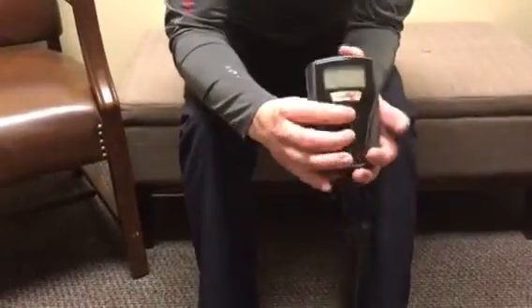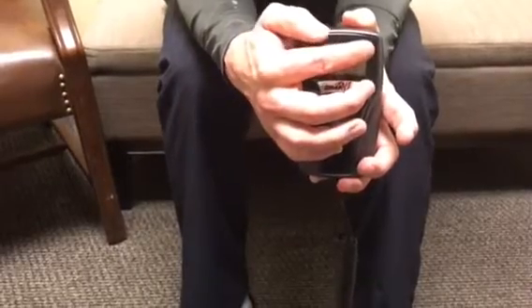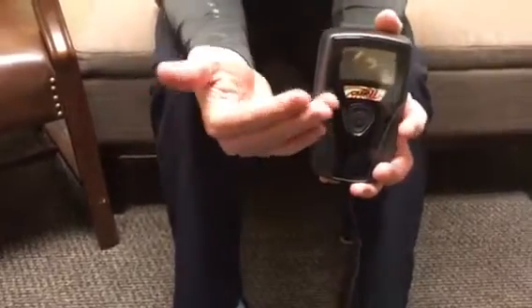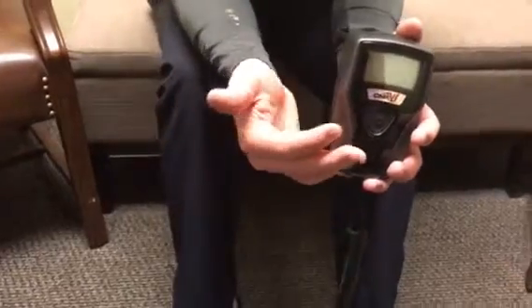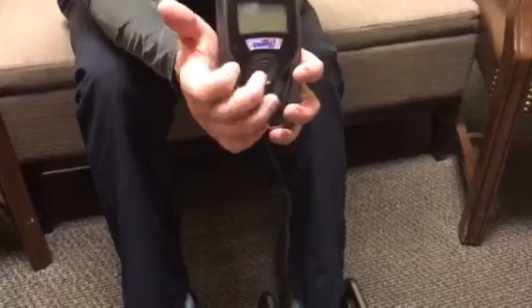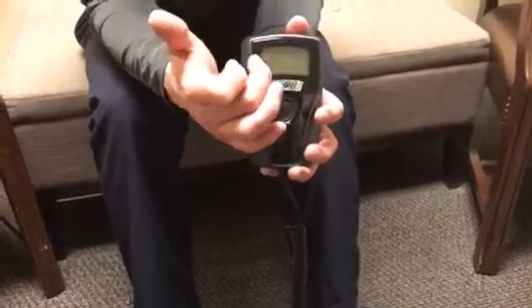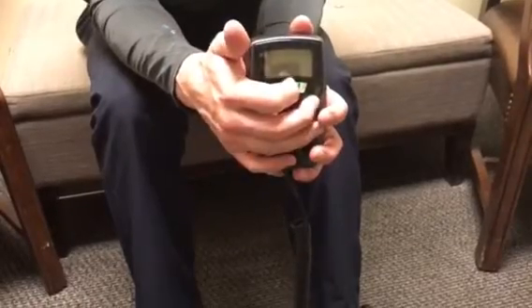First things first, you're going to press once on the module. As I press it once, you'll see 089270 — meaning out of the 270 available treatment sessions, it has been used 89 times. This is a compliance factor. If your doctor wonders if you're utilizing the bone growth stimulator, you can press once and show him the treatments available and how many times you've used it.